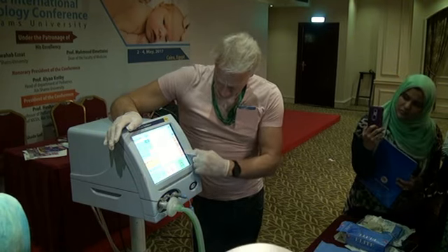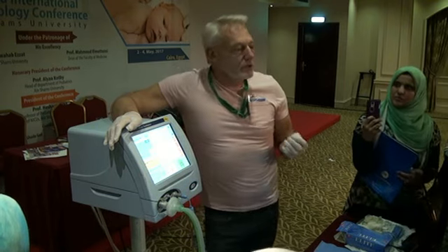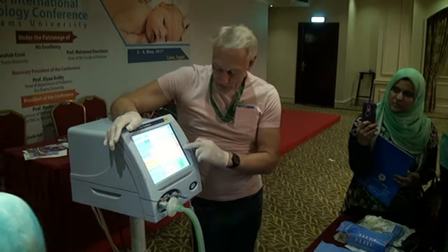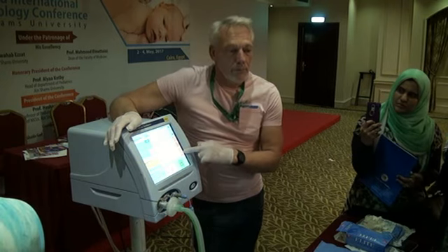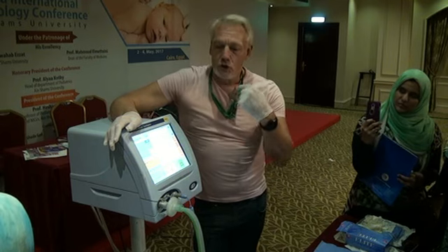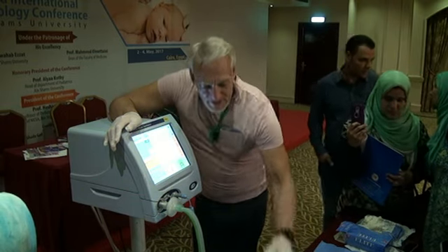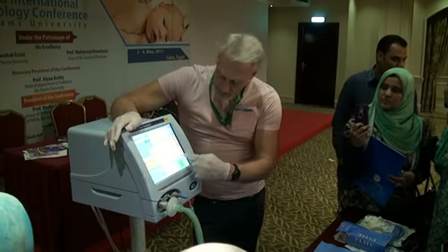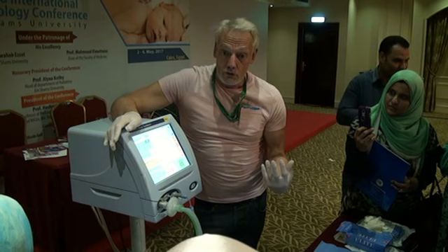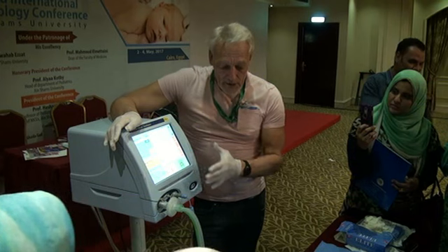We also get some other measurements here. Resistance and compliance. These numbers are just useful guides to look at as you change your ventilatory parameters. You can get an idea of the compliance of the lungs as to whether you make any improvements. Now the resistance is mostly tubing, ET tubes, trachea, etc., narrowness. But your compliance is your intrinsic elasticity of the lungs. And sometimes, if you keep an eye on that number, you can get an idea of how you can do better. So I think some of these numbers are here to help you, some of these graphs are here to help you, and that can be very good.